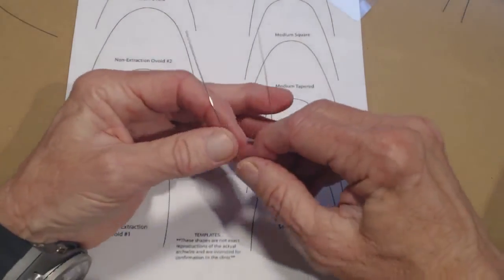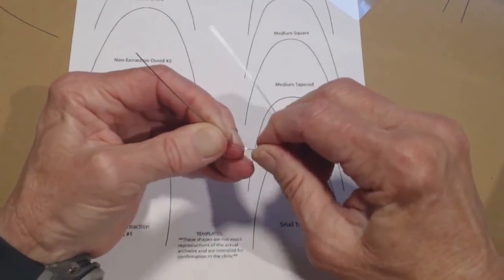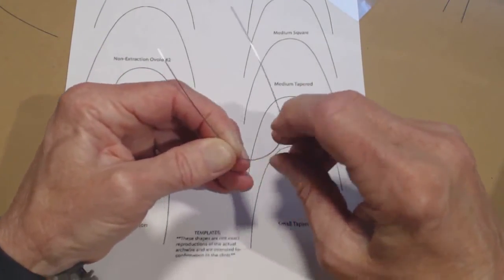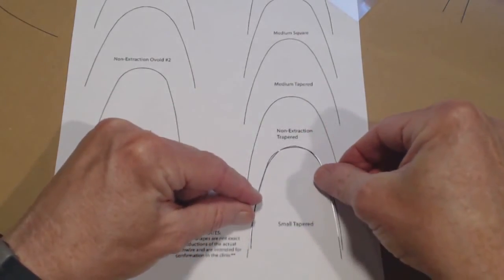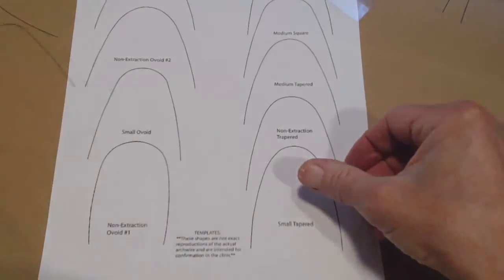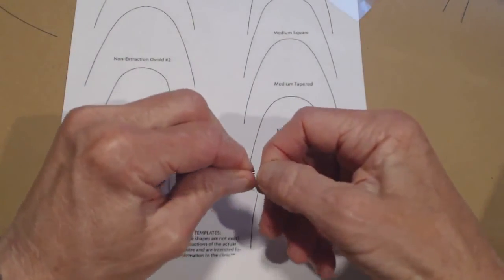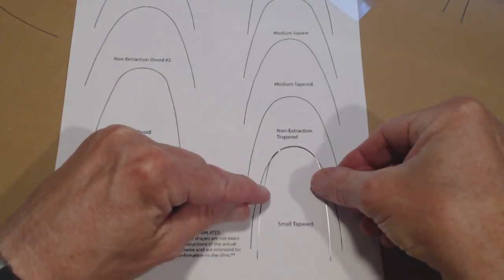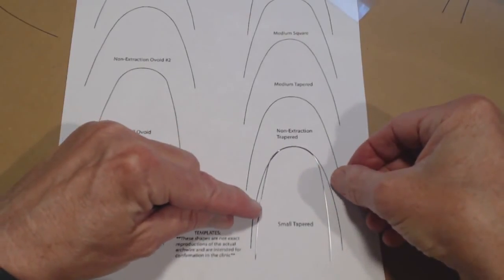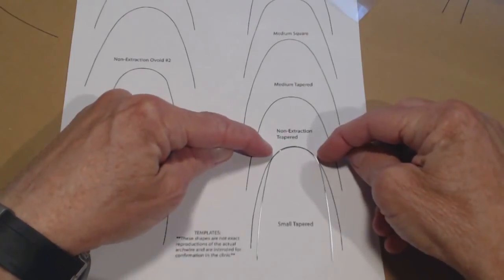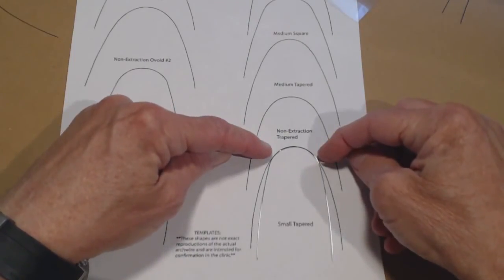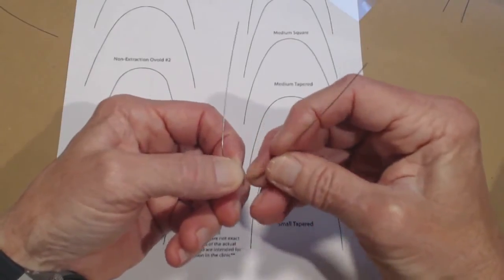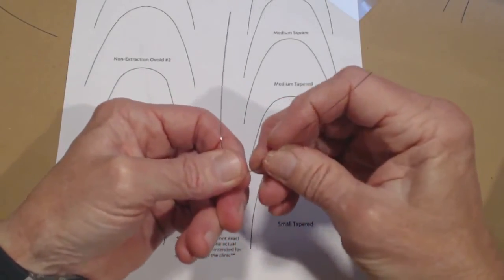And then again, using just my fingers, I'm going to curve this in. I'm pushing with my right index finger in there, and I'm going to make this be a tighter radius. And you can see I'm getting closer to the right shape. Now I'll make it be tighter yet. And then I'm pretty good right there in the front. I need to change the taper right around here, maybe 18 millimeters away from center line. Now I need to start making it go back outward.